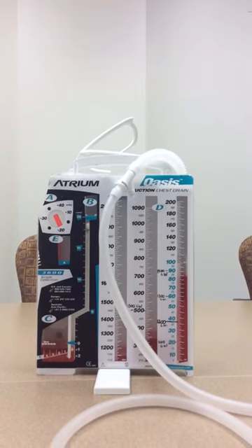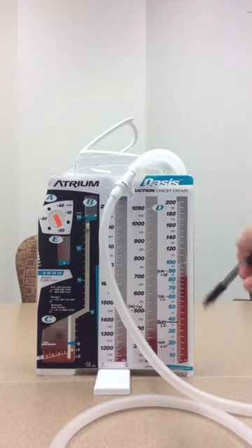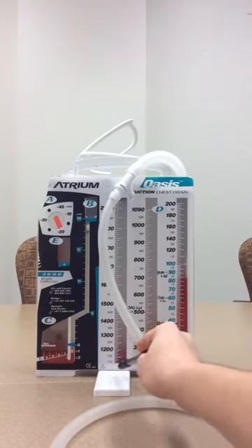And D is your containment area, so this is where all the drainage goes into. This is divided by one milliliter per tick, while over here it is 10 milliliters per tick.